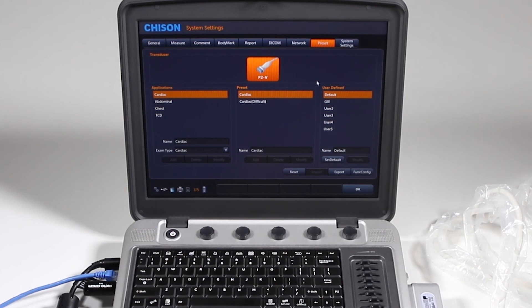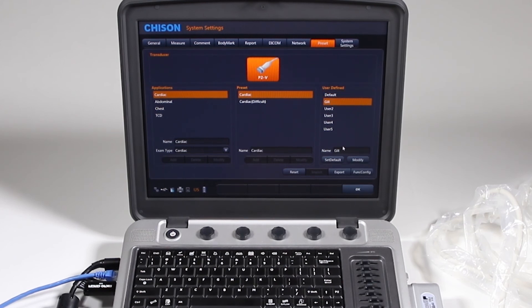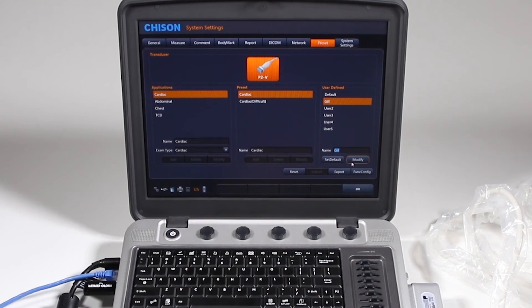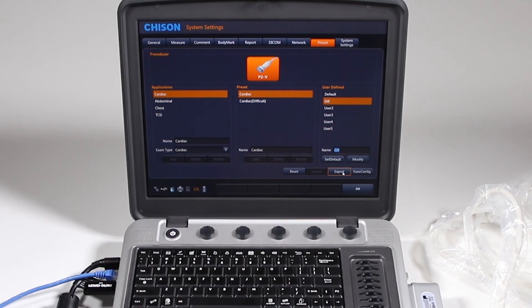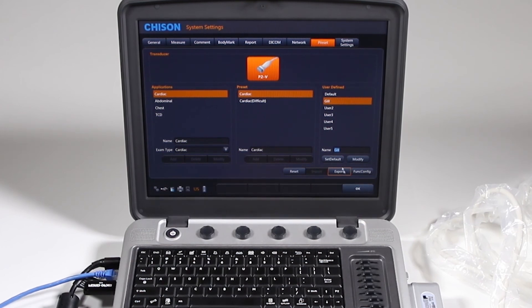Preset, this is where we did our imaging presets. Note that I can change these names and modify various things for it. But this is where you would adjust all your custom presets and things like that. You can also export that configuration and import it into another system.